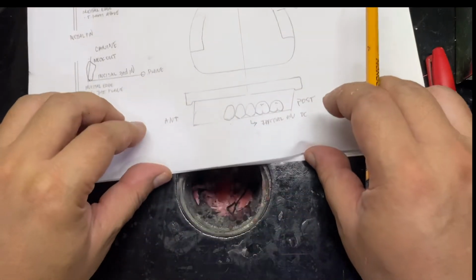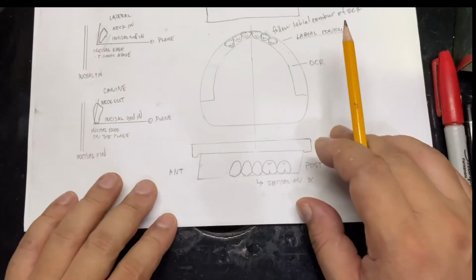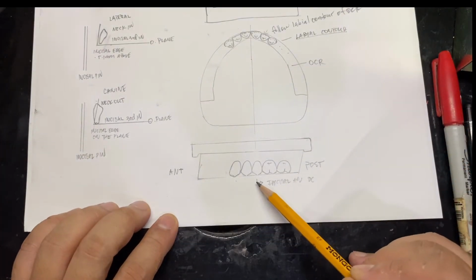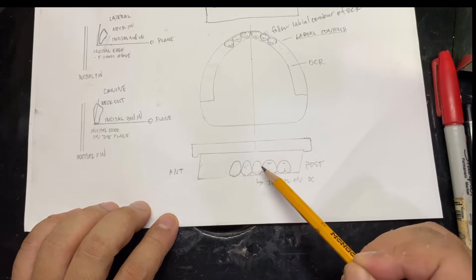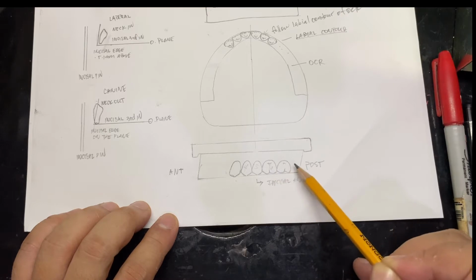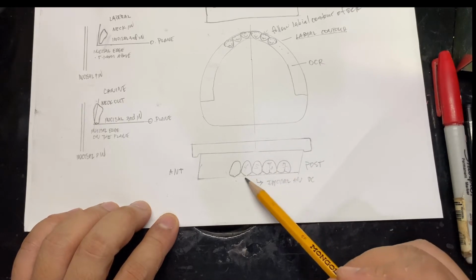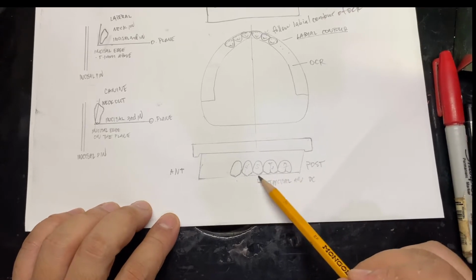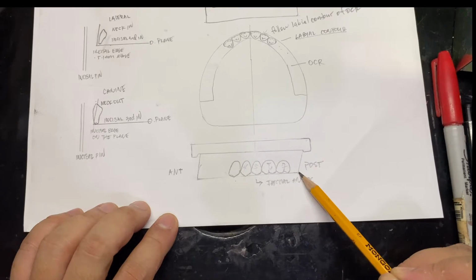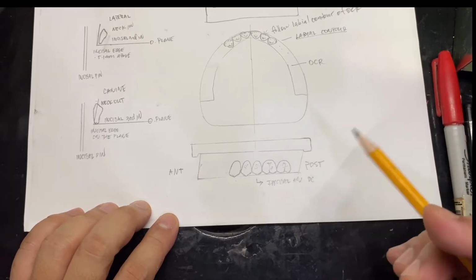Now, once you're done setting the anterior teeth, as you look at this area, if this is your first premolar, second premolar, first molar, and then second molar, from the incisal tip of the canine, the occlusal tips of the premolars and molars will also follow the occlusal plane. So like what I've said, OCR is used as a guide for setting artificial teeth.